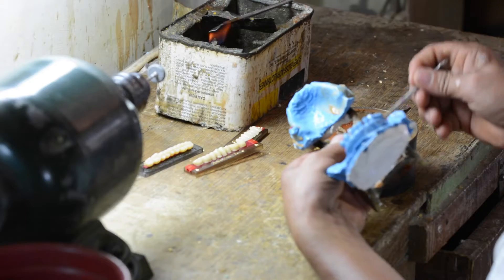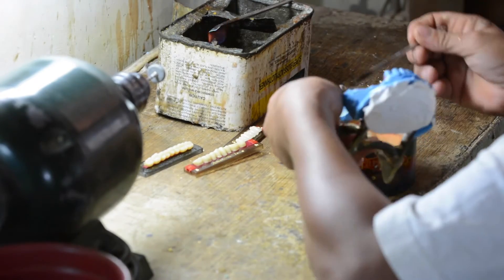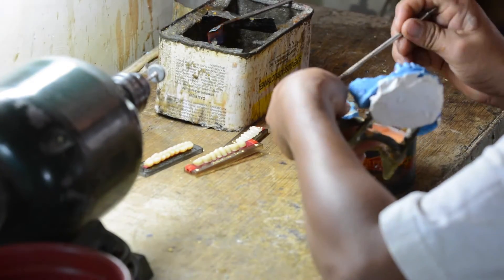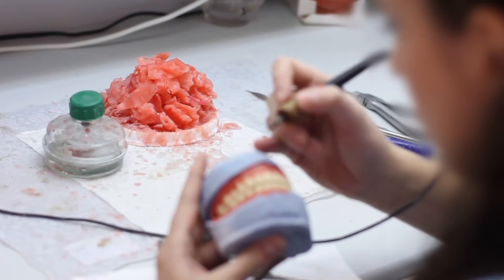For the last 45 years of delivering dentures or longer, there was always an unknown. When patients are looking for a denture, their biggest complaint is that they don't fit.